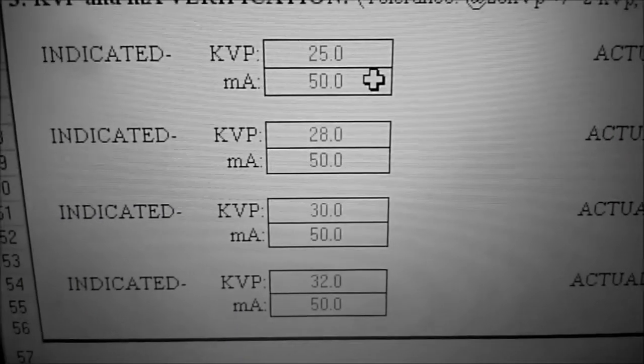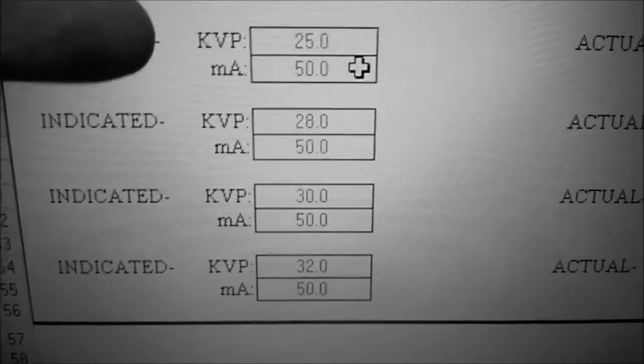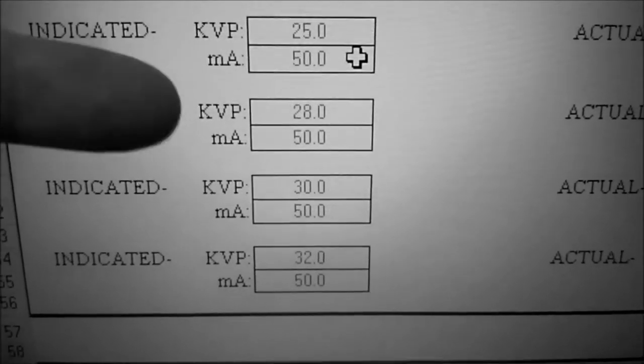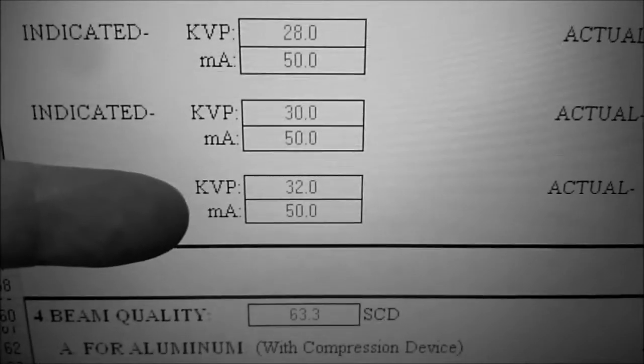KVP, we're going to take various shots at 25, 28, 30, and 32.